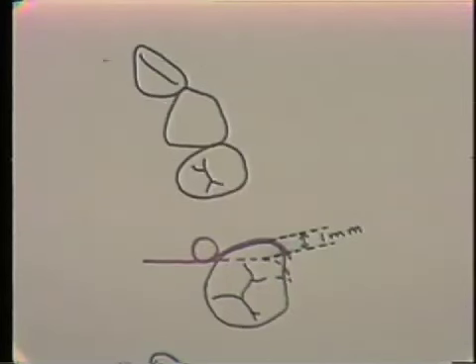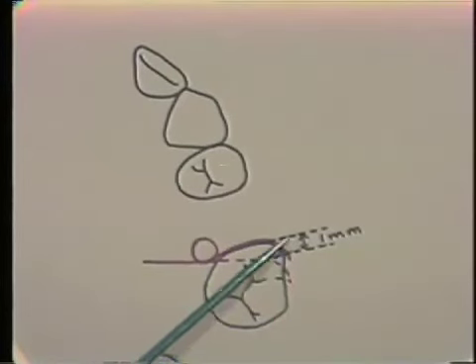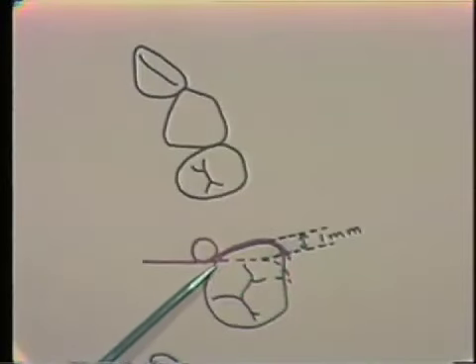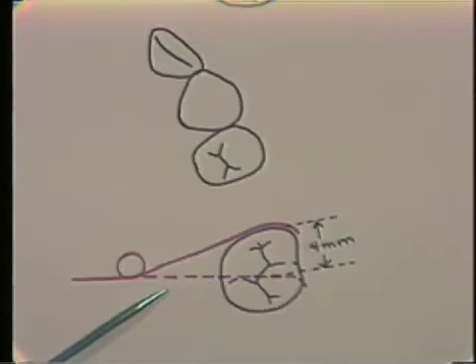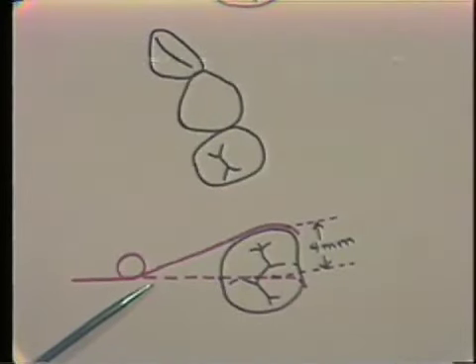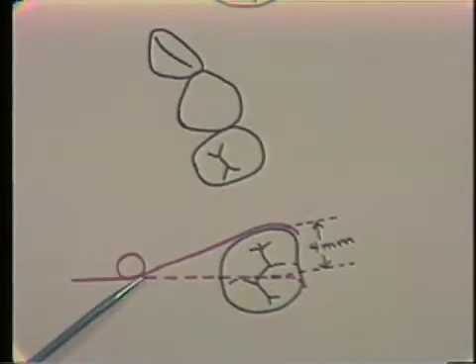Spring configuration can affect the clinical action of a spring. The length of the spring arm affects the range of tooth movement possible. If the spring arm is short, the effective range will also be short — for example, a short spring arm may only allow a one millimeter range of activation. With a longer spring arm, a greater range of tooth movement is possible — four millimeters of effective tooth movement range is possible with the longer spring arm in this drawing.